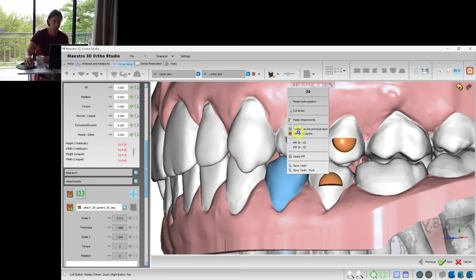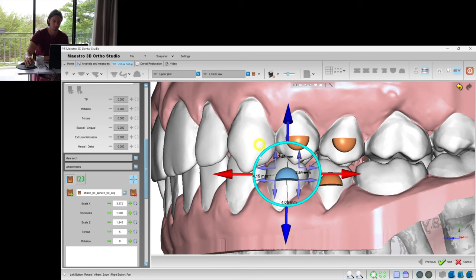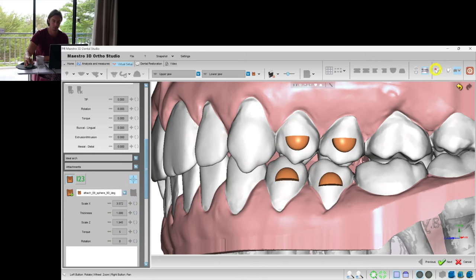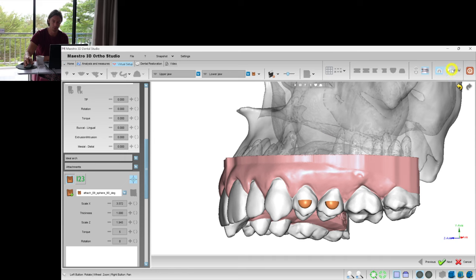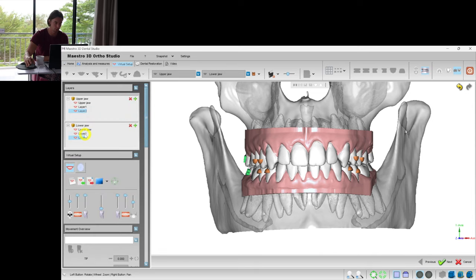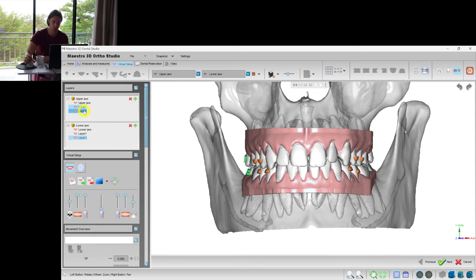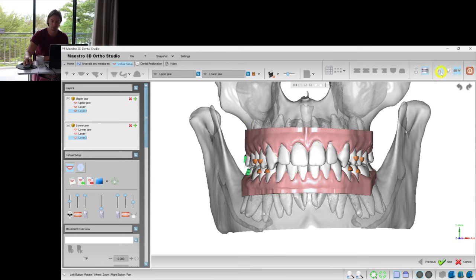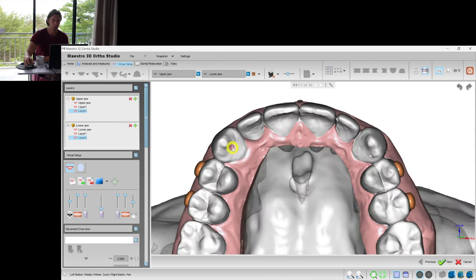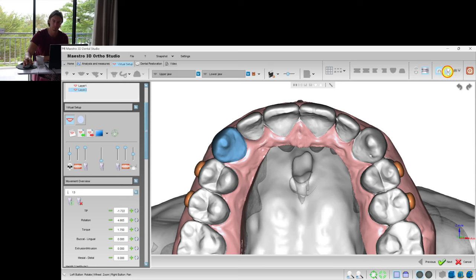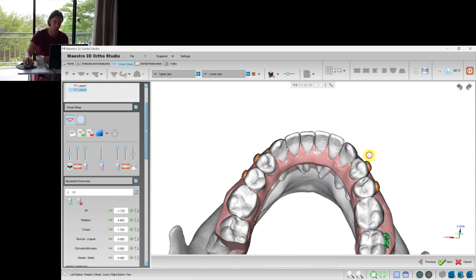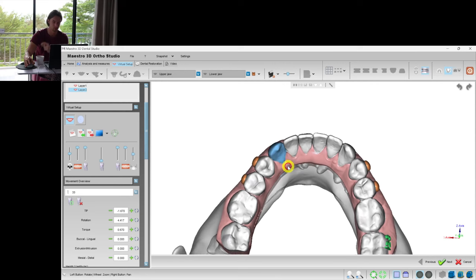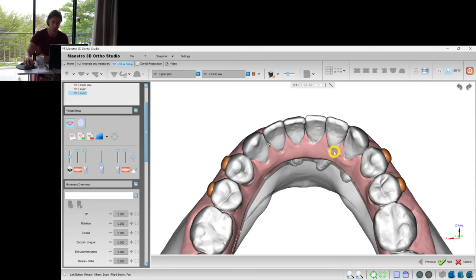And now let's set those attachments for all the layers. And now let's check. Yep, we see the same attachments at layer 1 and layer 2. And let's see, do we need some other attachments. Here we rotate the canine for 5 degrees. So we should probably put the attachment here because the canines always require attachments to rotate.